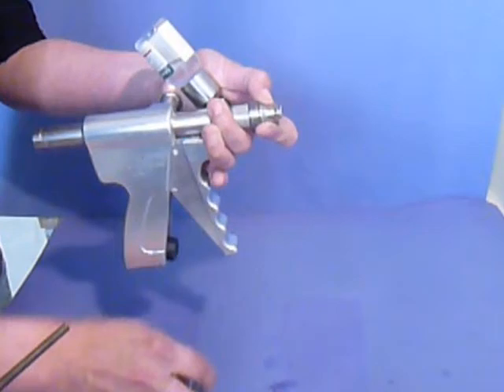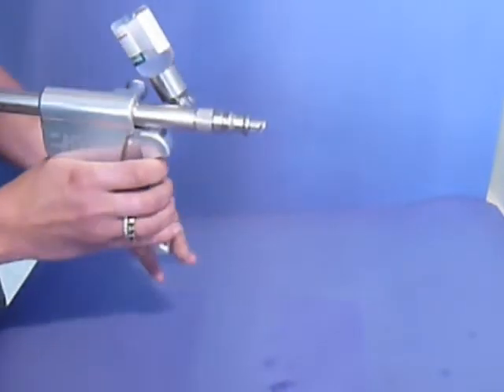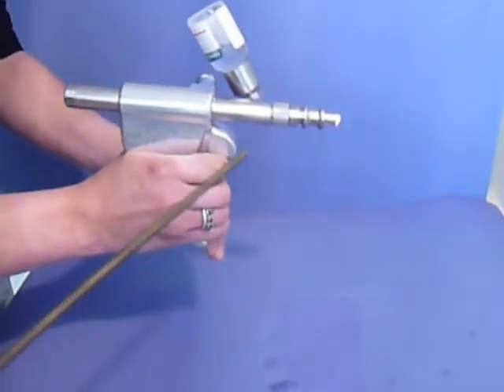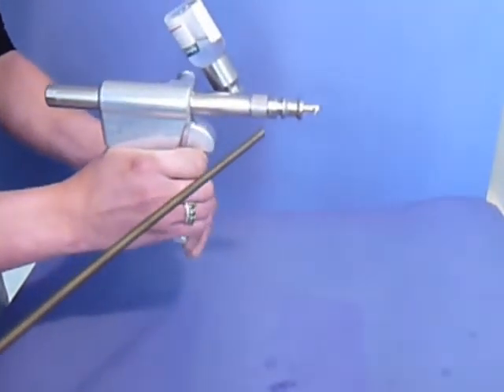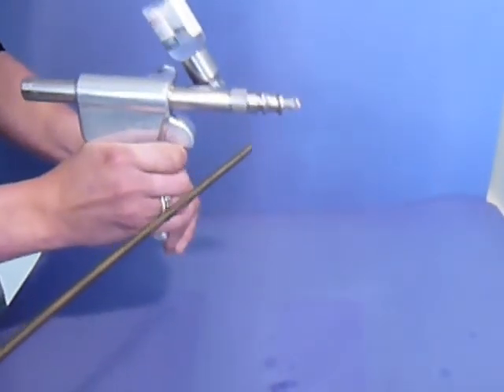So now you can put the tip inside. You fire two times and you can see there's pressure. So it's okay, you can use it.